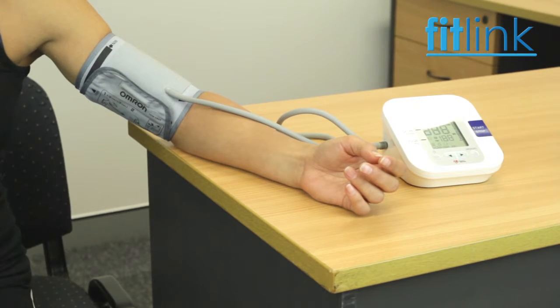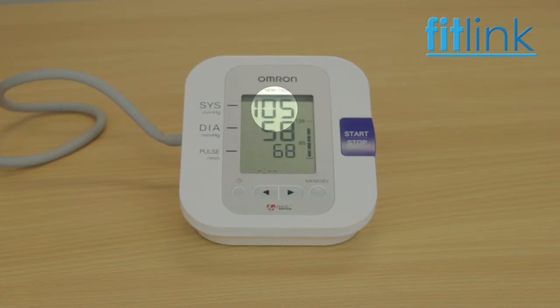Press the button or proceed to squeeze the rubber bulb to pressurize the cuff to around 160 millimeters of mercury. When pressurization is complete, the automatic exhaust mechanism will gradually reduce the pressure in the cuff and begin to measure both systolic and diastolic pressures and the resting heart rate.